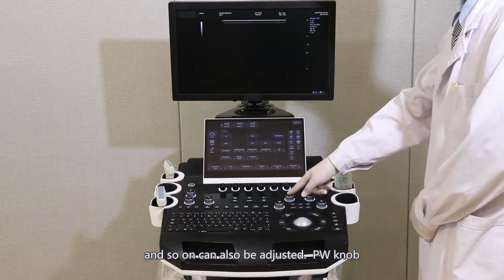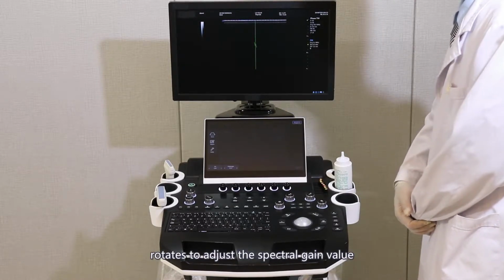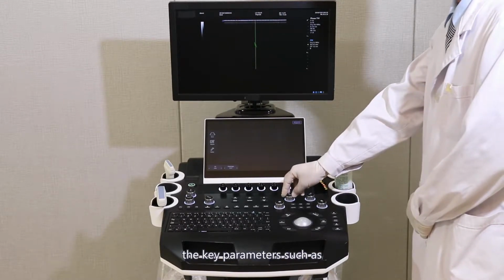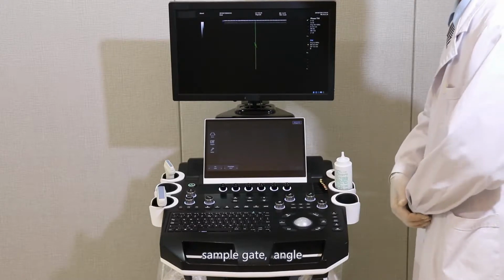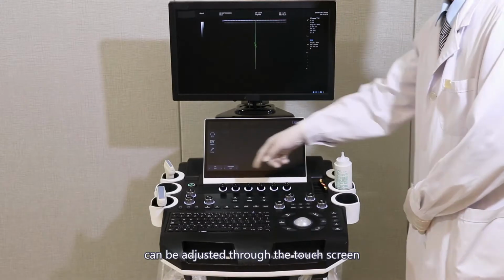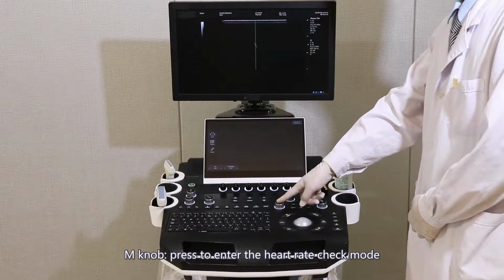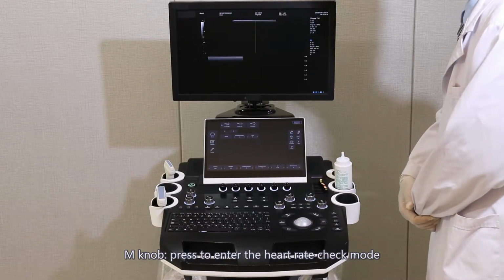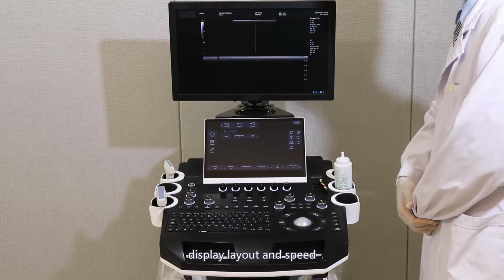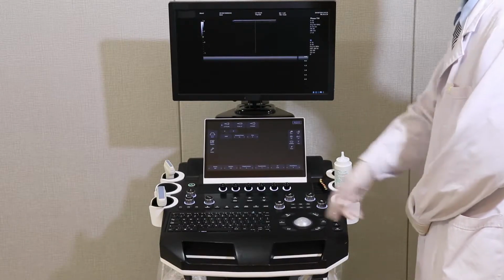PW knob. Press to enter pulse Doppler. Rotate to adjust the spectral gain value. Key parameters such as sample gate, angle, and display layout can be adjusted through the touch screen. M knob. Press to enter the heart rate check mode. Update button to refresh. Display layout and speed can be adjusted through the touch screen.